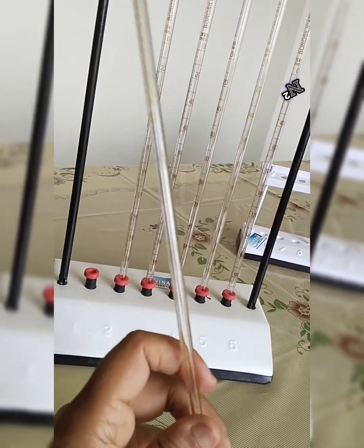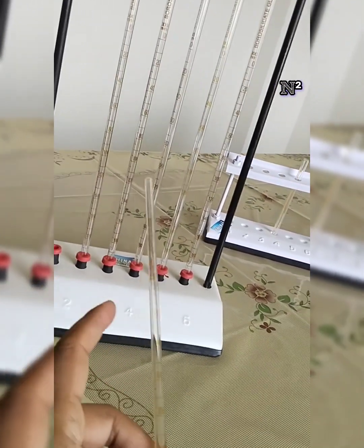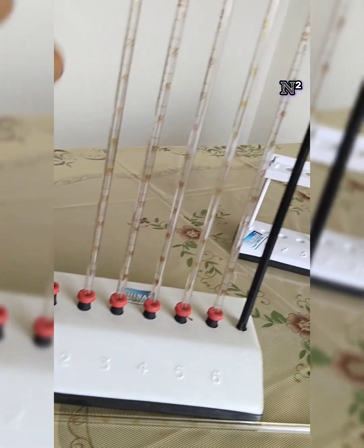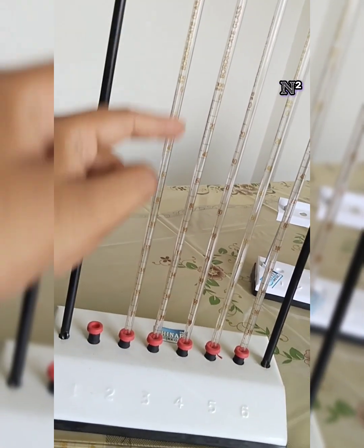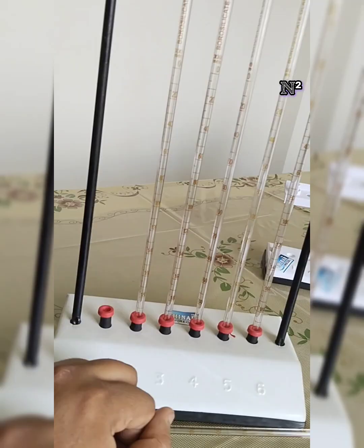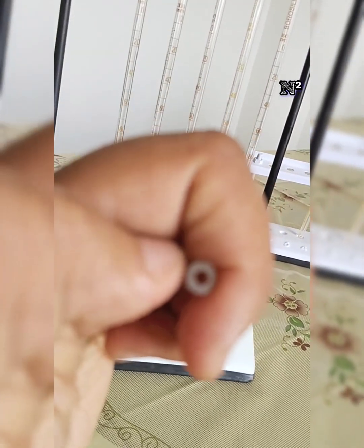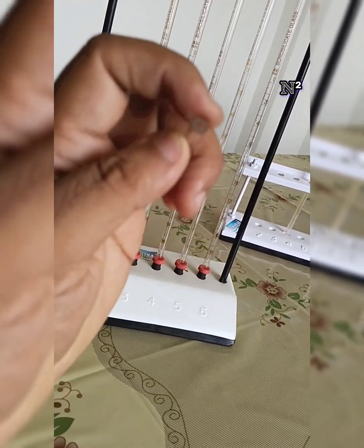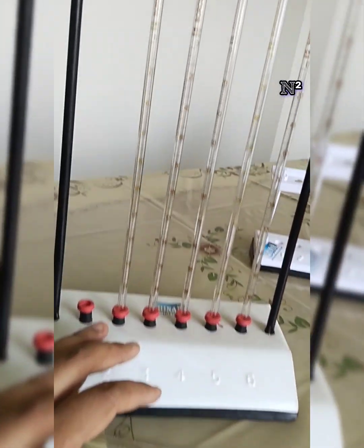So this Westergren's pipette is an open-ended tube with a length of 300 millimeters. If you do the measurement from the bottom to the top part, you will get 300 millimeters, or 30 centimeters in length. If you take the cross section, or take a measuring tape and try to measure the diameter of this pipette, this open-end pipette will be 2.5 millimeters in diameter.